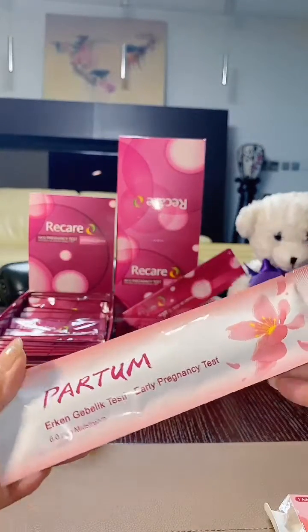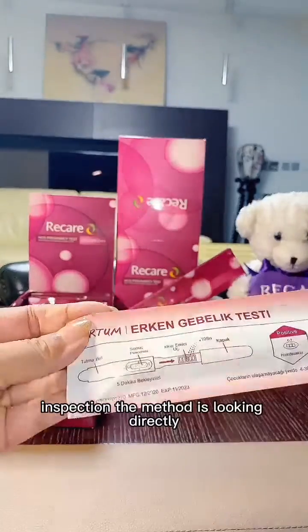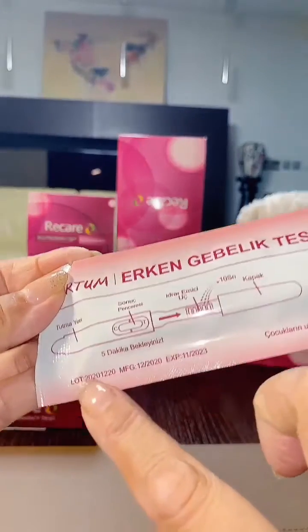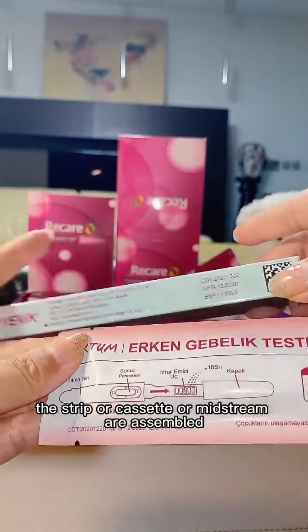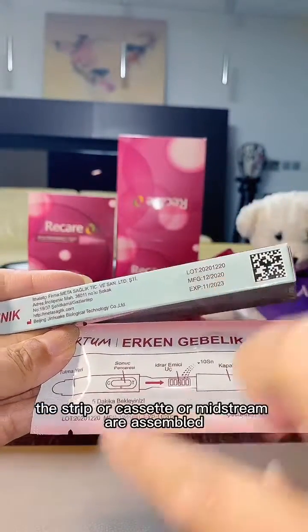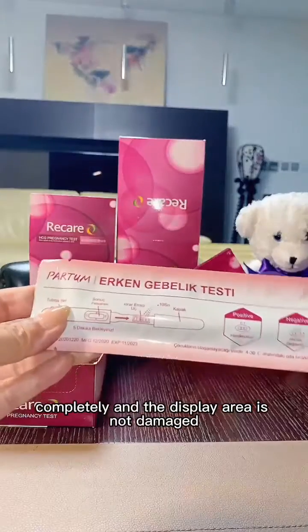Step 2. Appearance inspection of the test. The inspection method is looking directly. The appearance should have no damage at all. The strip, cassette or midstream are assembled completely, and the display area is not damaged.